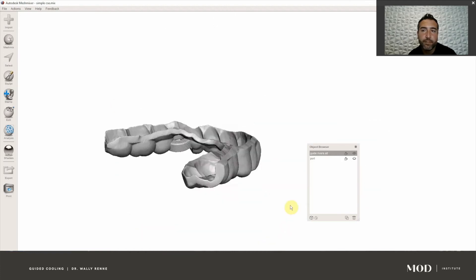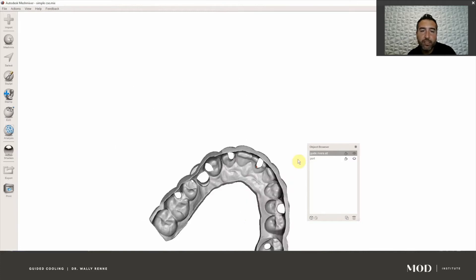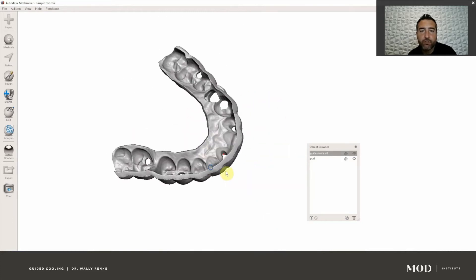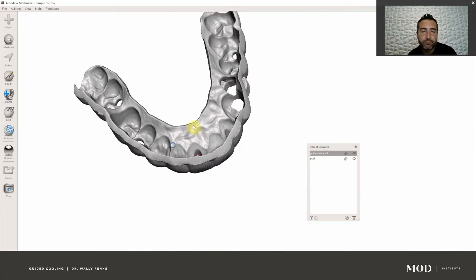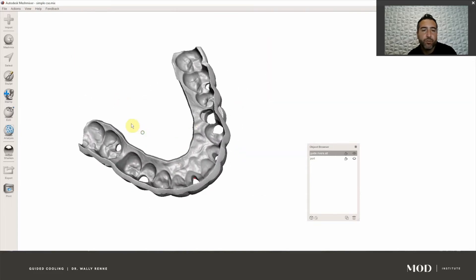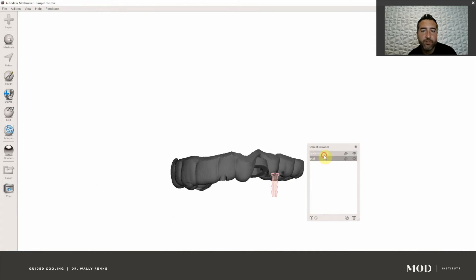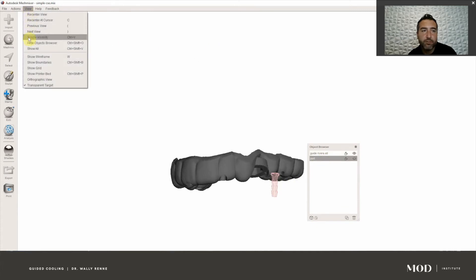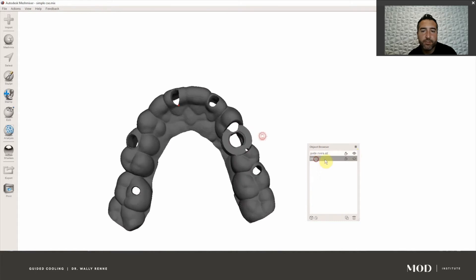That lets you rotate the model freely. The other thing we need to do is go through the controls. Right-click rotates, just like on most CAD softwares. The scroll wheel zooms in and out, and if you click and hold the scroll wheel it translates the model. If you left-click it does nothing except you can change files. In your objects browser you can see we have a file here. If you don't see the object browser, go to View > Show Objects Browser. The little eyes will click things on and off. You know it's selected if it's the brighter color versus the darker color.